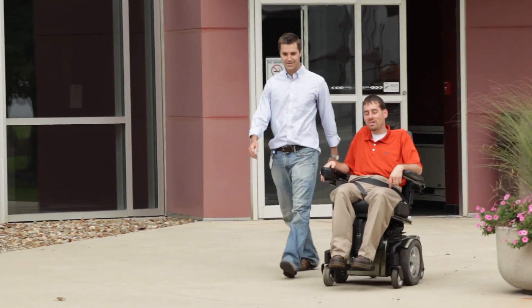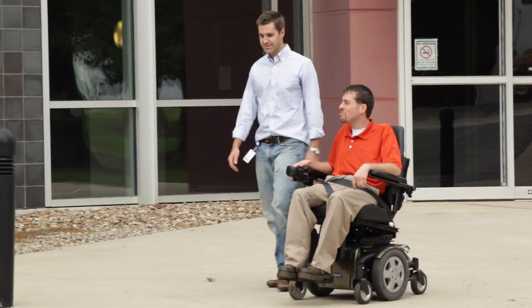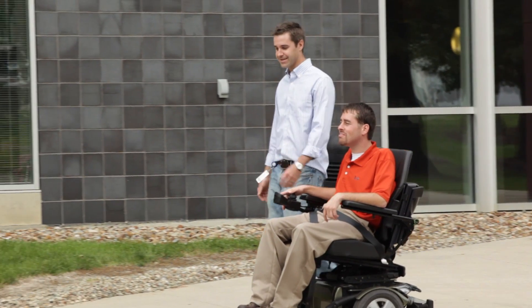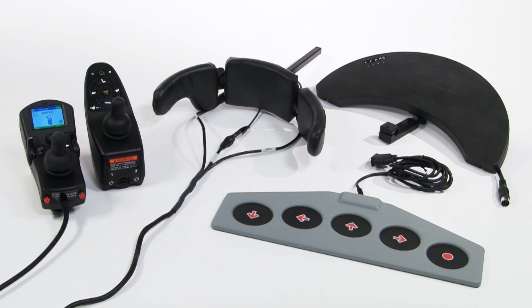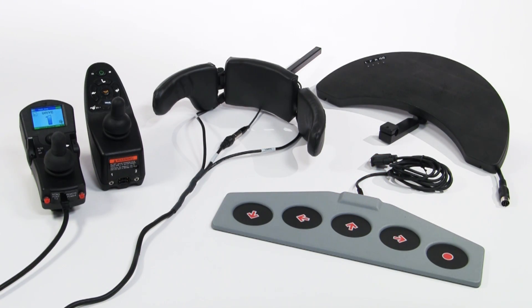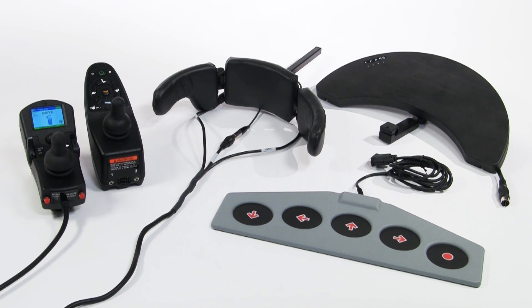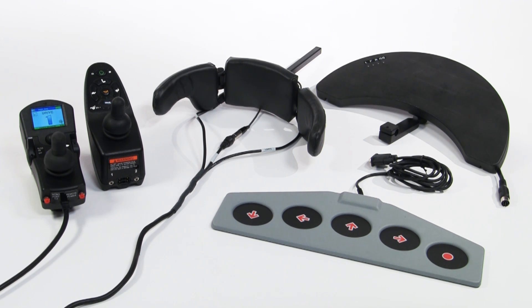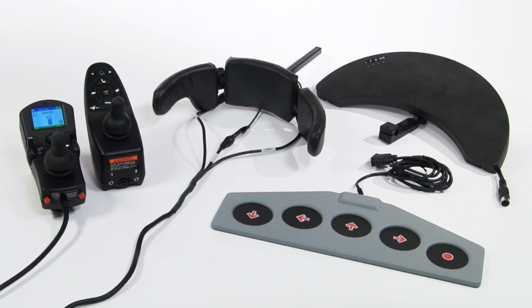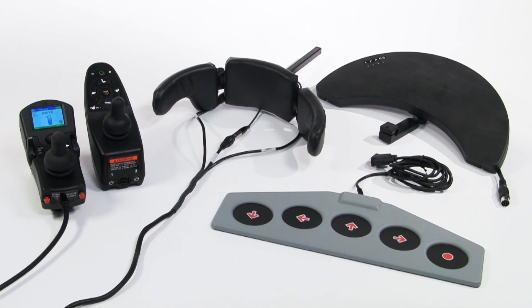Proportional hand controls are generally the first choice when selecting any driver control. They give the user the most control over varied terrain and environments, allow slow driving when required in small spaces, react for faster driving when needed, and provide precise directional control for accessibility and maneuverability.